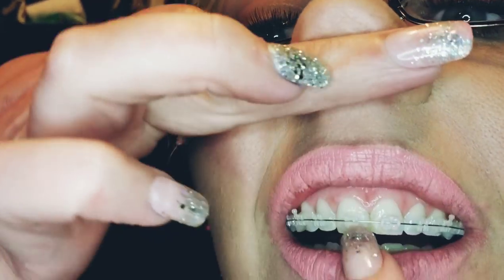I take it and hook it on the corner of the bracket, then just wrap it around — and it's on. Making sure my wire stays pushed in — see, that's stable. Hook it on one of the pieces — it looks like four pieces — and you just gotta get around each one of those.